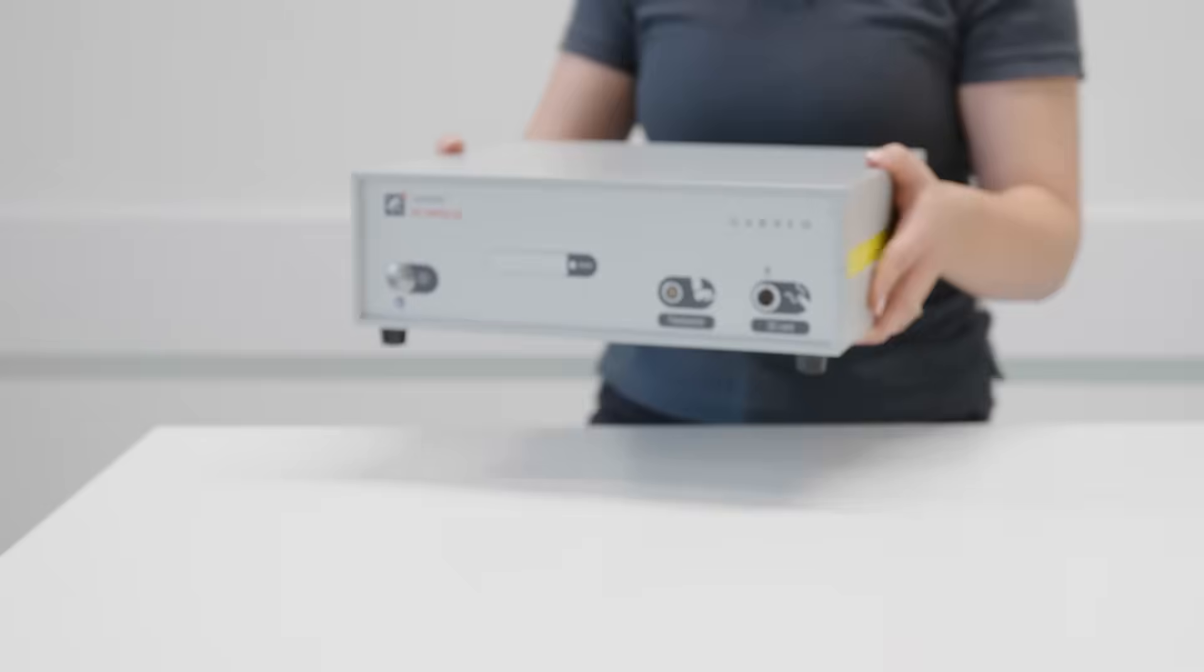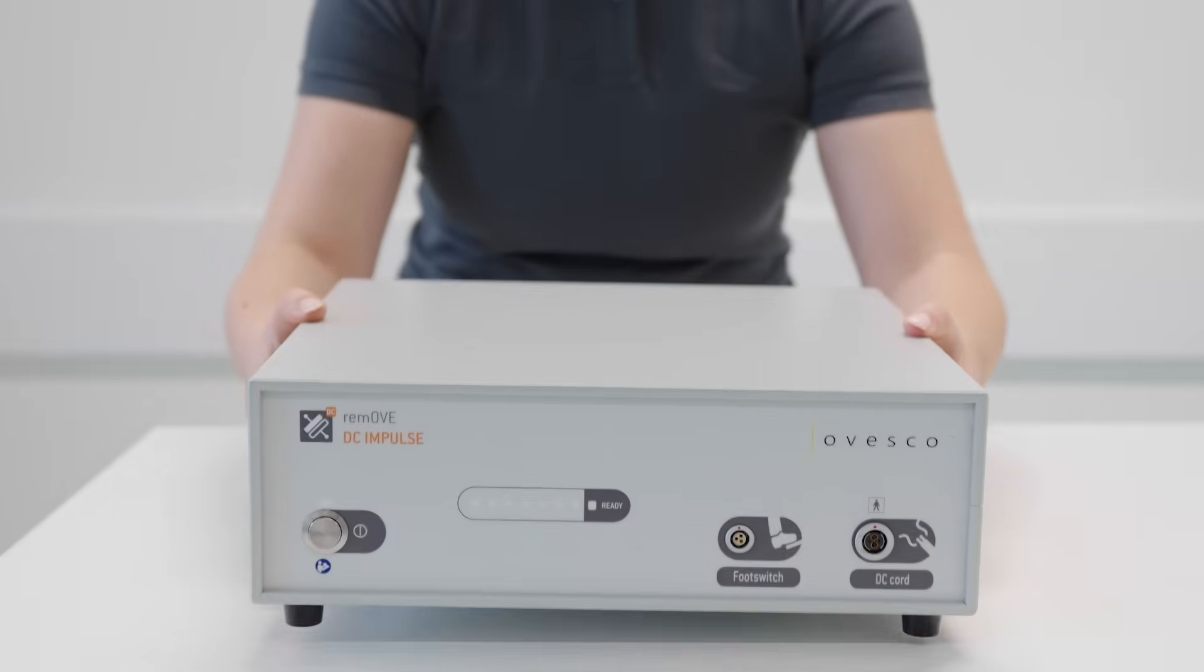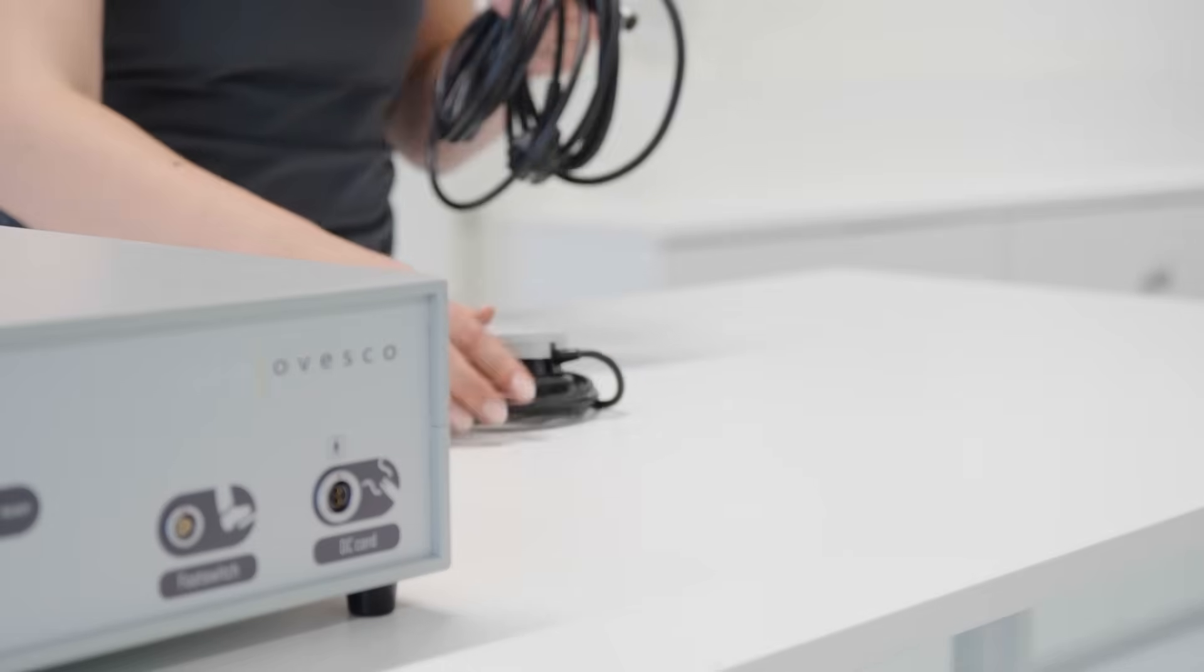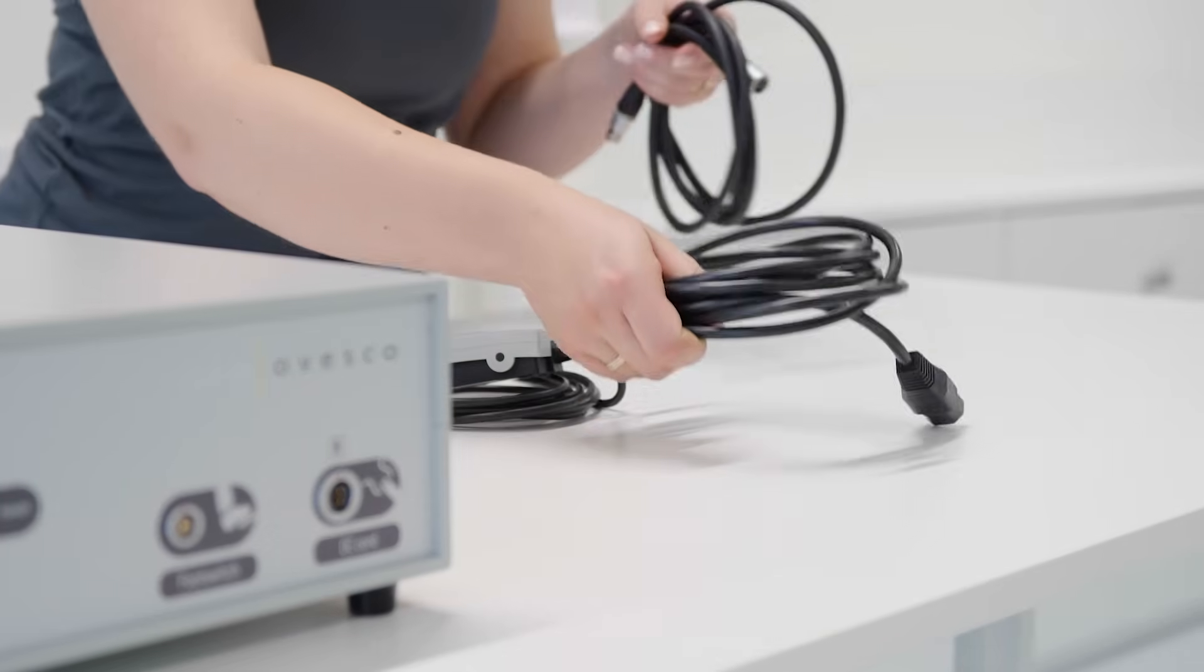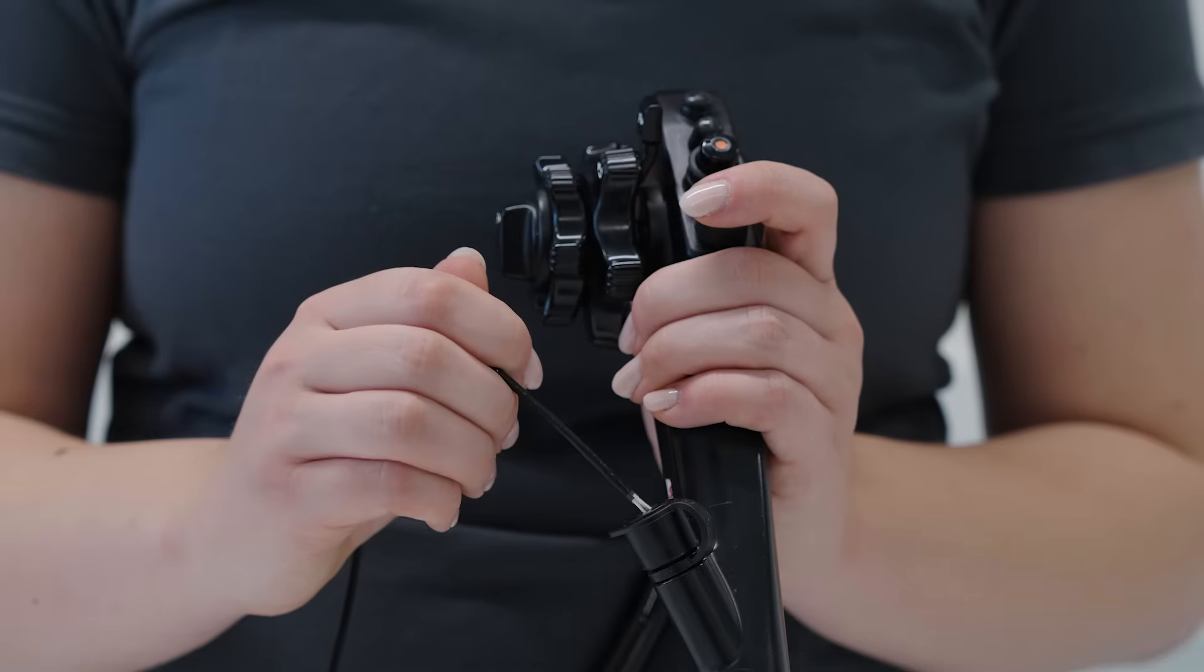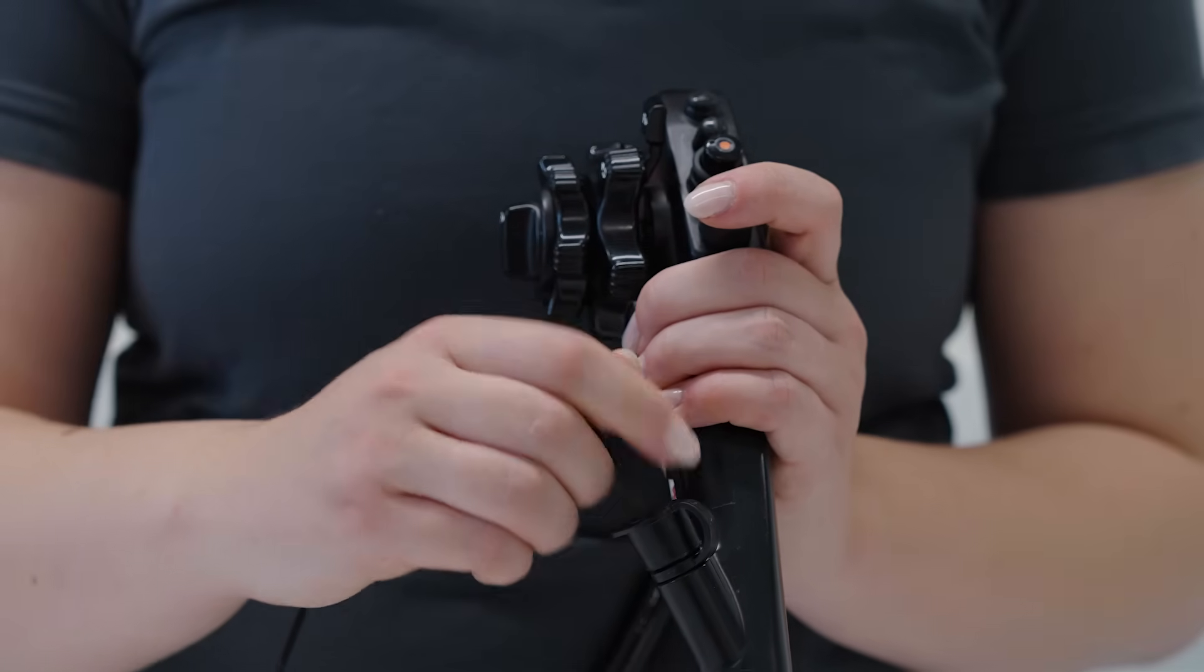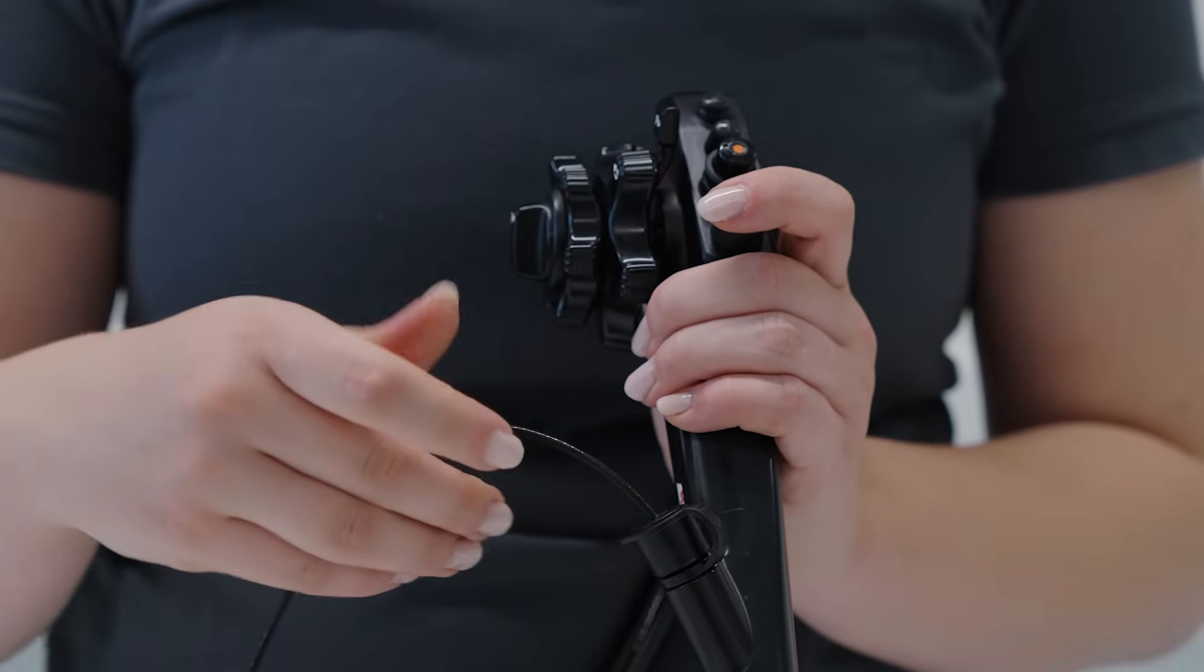The Remove System is celebrating its 10th anniversary. For a decade, it has enabled physicians to safely and effectively remove Ovesco clips endoscopically from the digestive tract. The system offers a gentle and reliable solution for clip removal whenever clinically required.